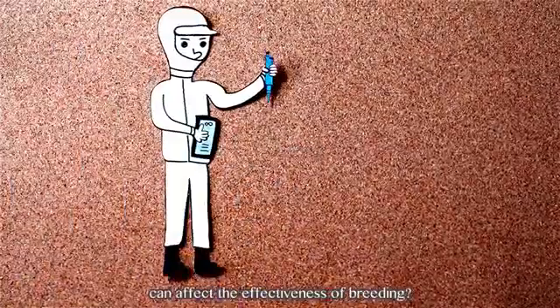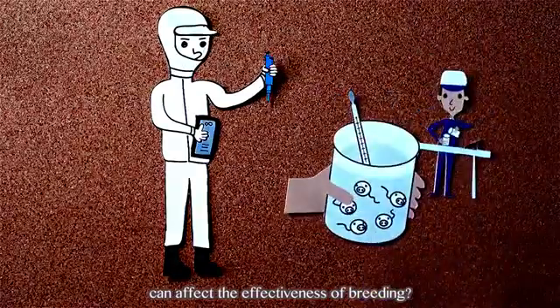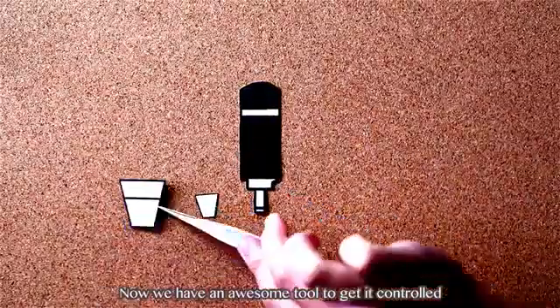Do you know the qualities of semen can affect the effectiveness of breeding? Now we have an awesome tool to get it controlled.